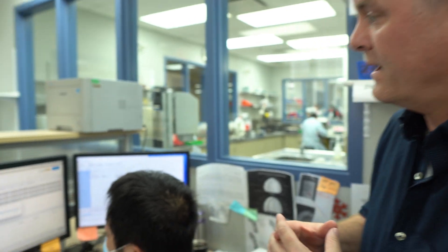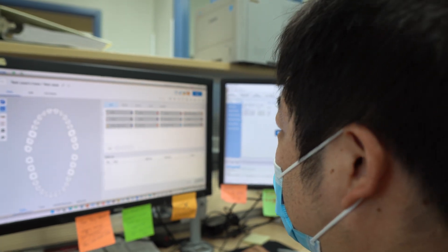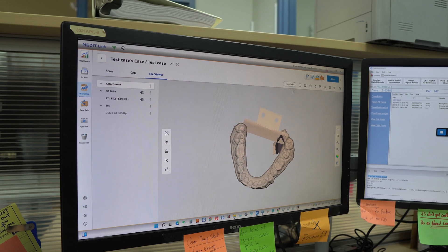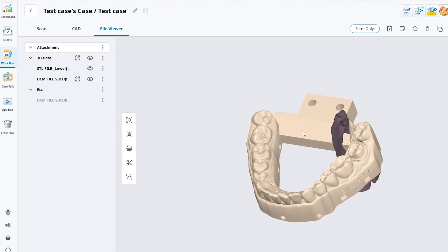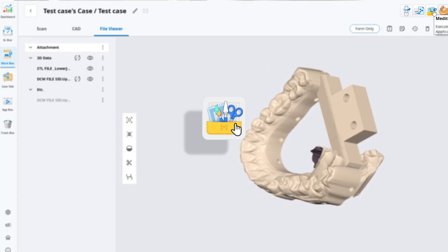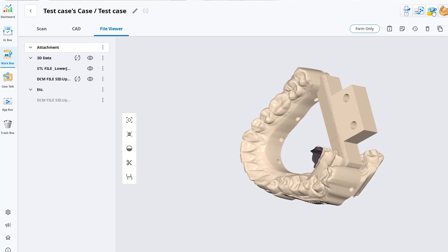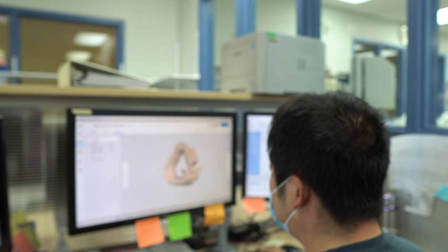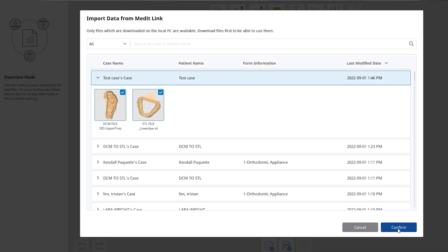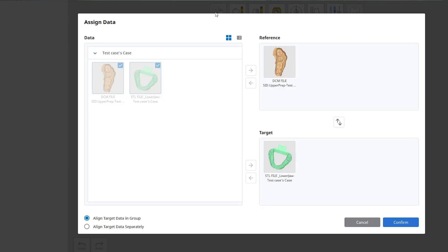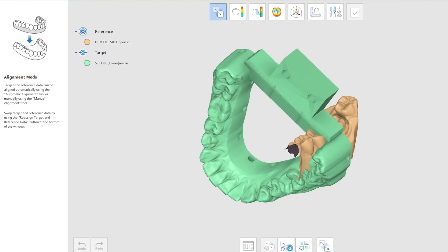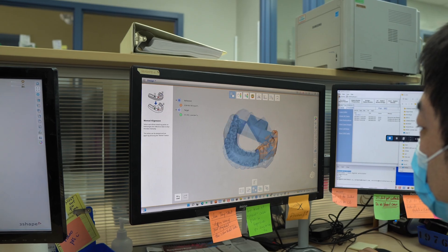So what Eric is doing here — we have a dentist who had concerns about the contacts for a case, so we're just double-checking that our model accuracy is on par. Right there is a scan of the digital models; you can see the articulator on the back, so we know that's after it came out of our carbon printers. Now we're taking the original digital impression the doctor sent us. Because the impression is in our 3Shape system, it is a DCM file, so he quickly hits the DCM function, converts it to STL, and brings it into the Medit design function. This is the main part where we superimpose them and look for any discrepancies, using the heat map function to pick them out.